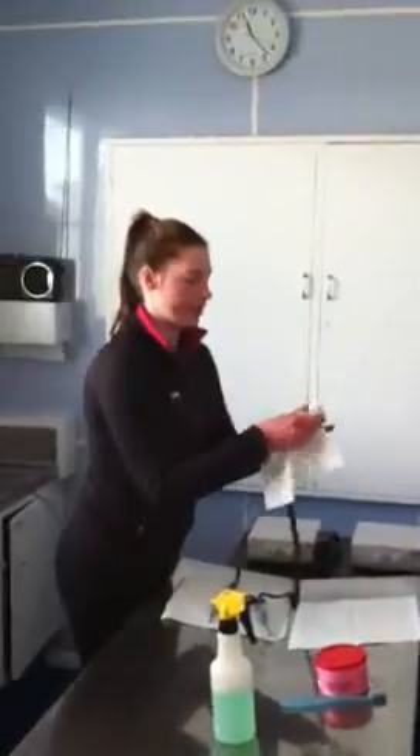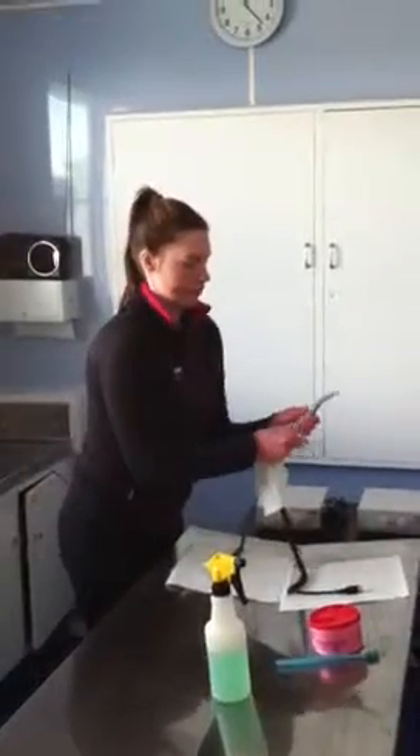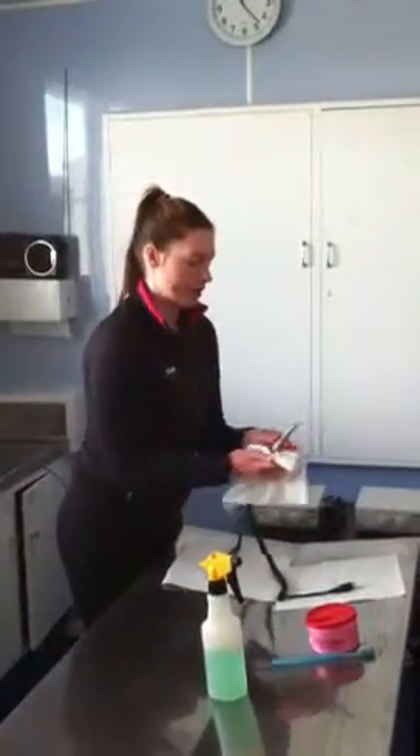The bacteria, obviously, when it's aerosolized, can sit on the cord. So we just want to make sure that not only the handpiece is clean, but also the cord and surroundings.